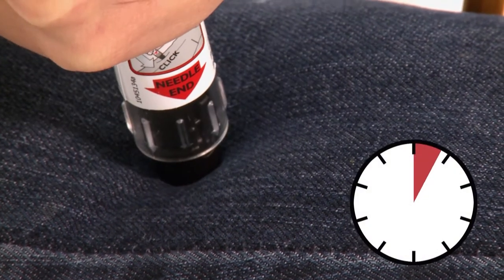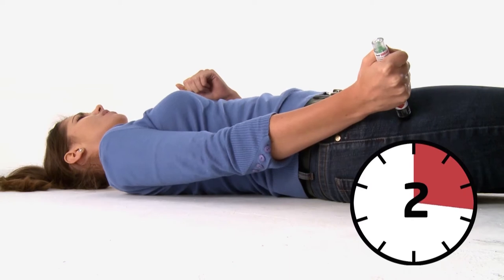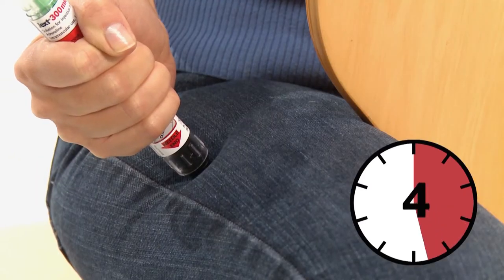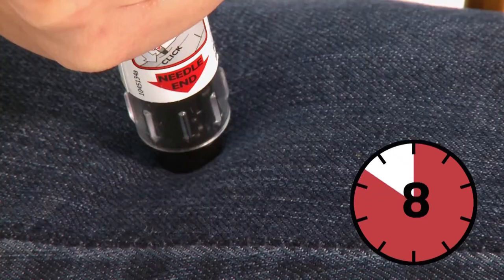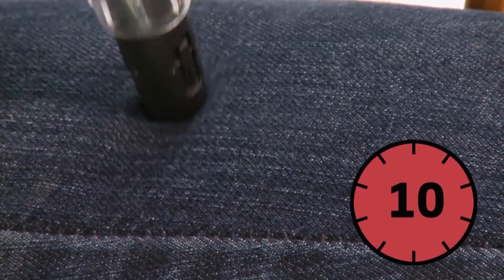Push the black tip firmly into your outer thigh until you hear a click, confirming the injection has started. Then keep it pushed in. Hold the injector in place against the thigh for 10 seconds, a slow count to 10, then remove.